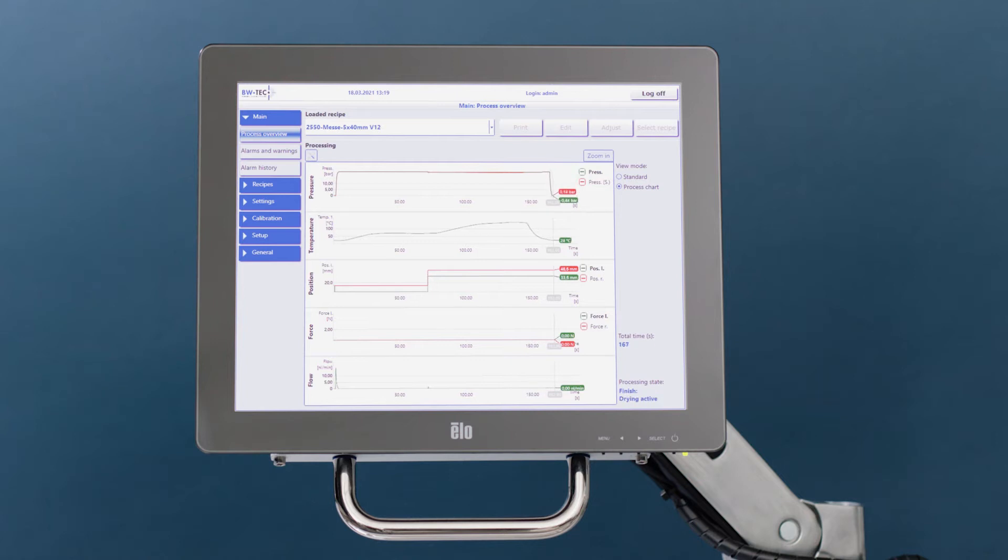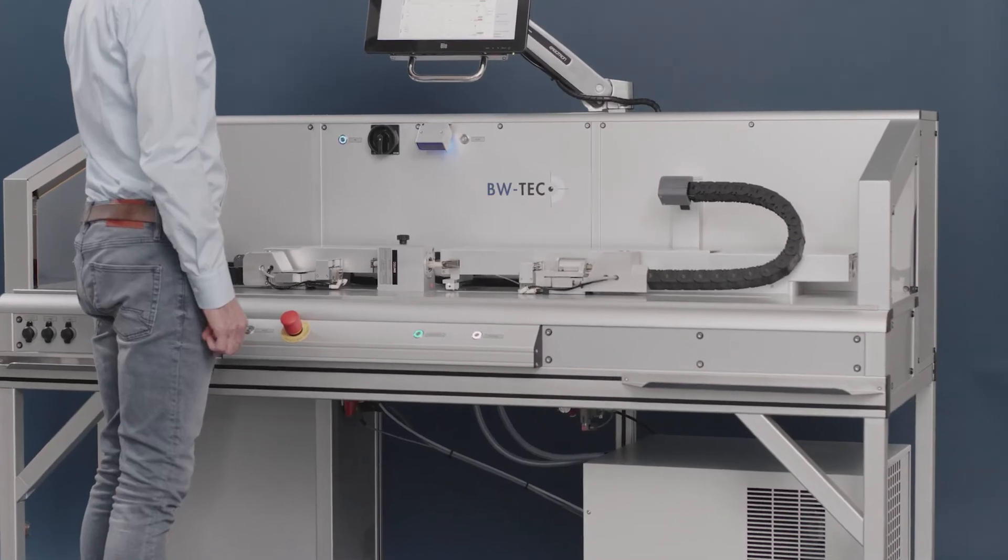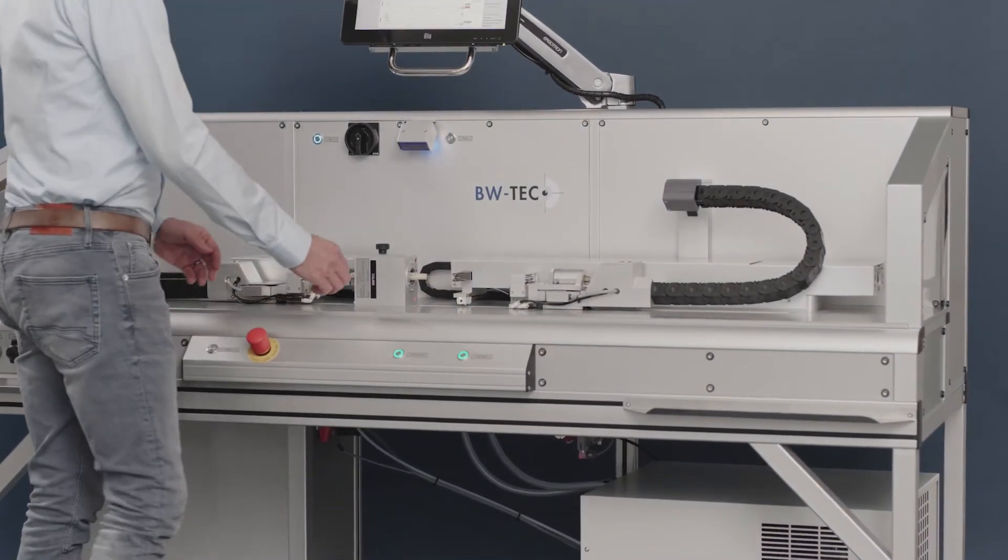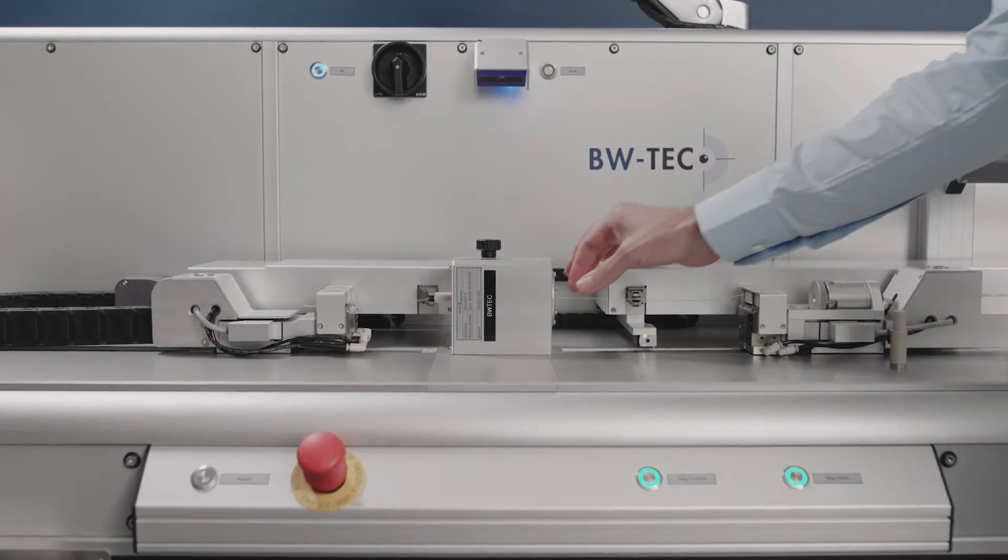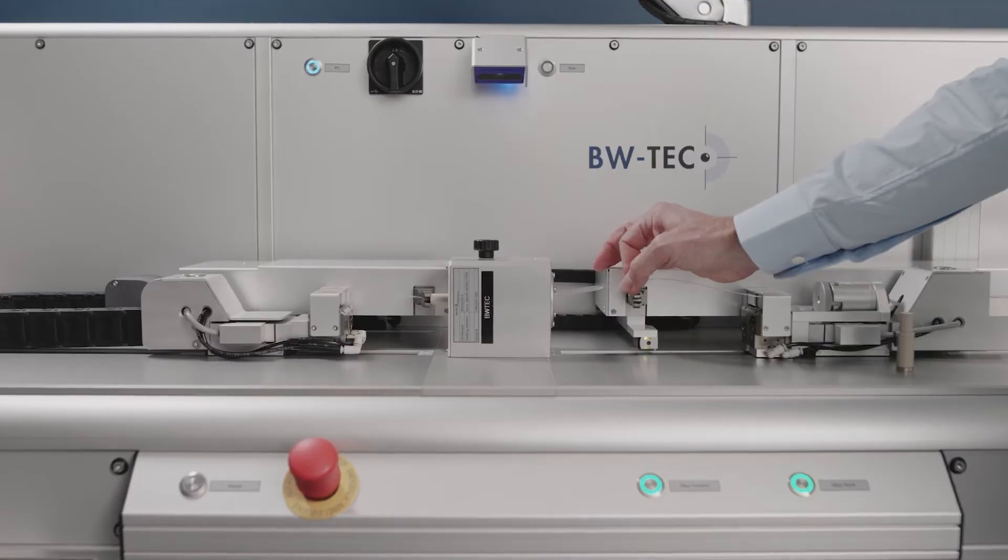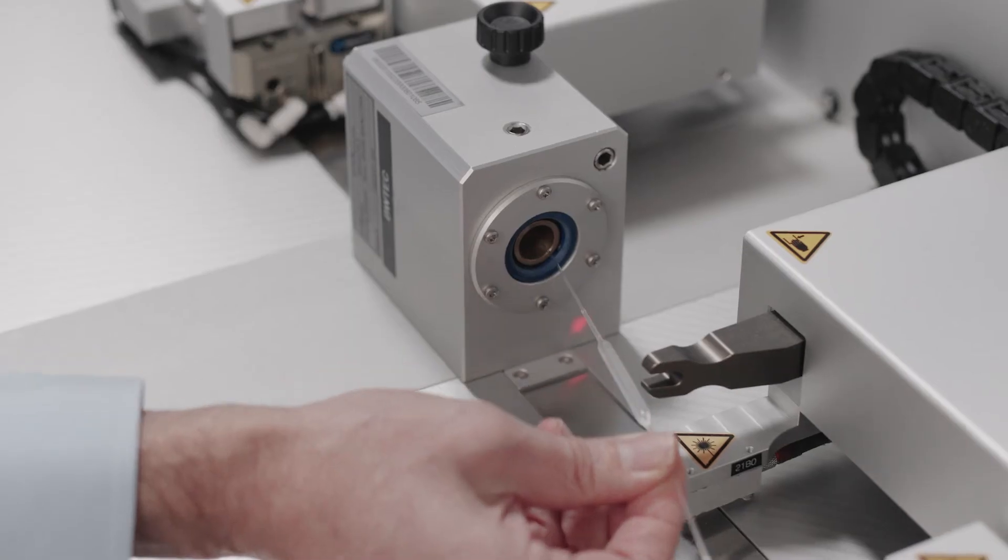The recipes can have multiple steps for you to produce the balloon according to your balloon requirements. After forming the balloon, we increase the temperature to stabilize the balloon and cool it down to room temperature. The balloon is produced.